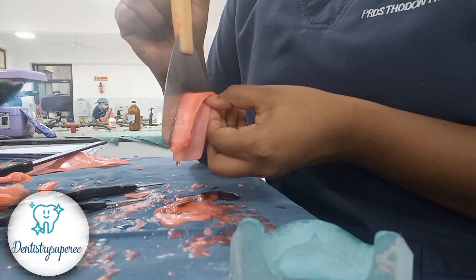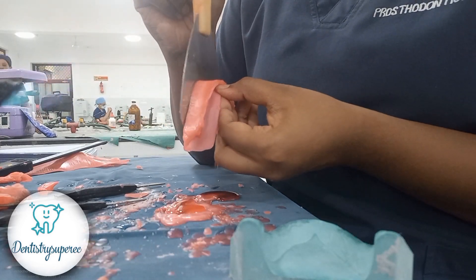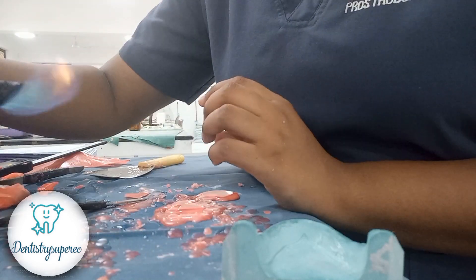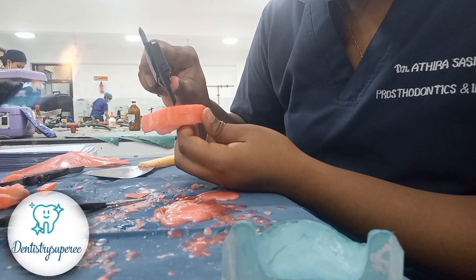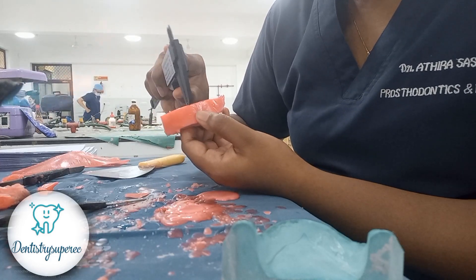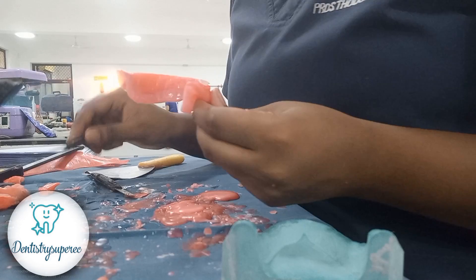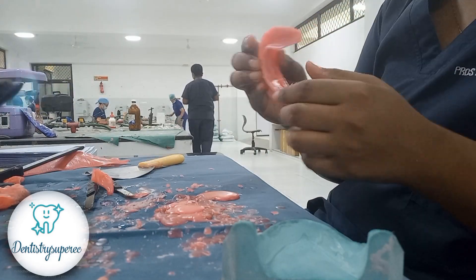You need time for the wax to melt, the exact measurements to be taken, and the melted wax to cool down. For the maxillary rim it might take 10 minutes, but believe me it is worth it — it gives such a nice, satisfying result. For rim thickness on the mandible: two to four, four to six, six to eight. Either take the lower end — two, four, six — or the higher end. I take the higher end: four in the anterior, six in the middle region, and eight in the posterior.